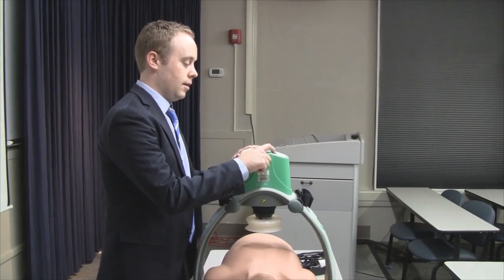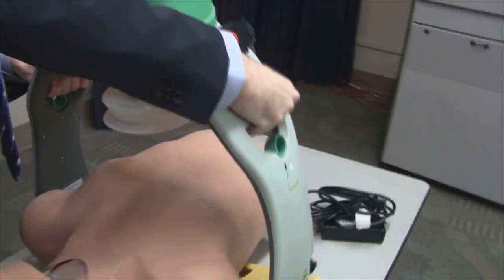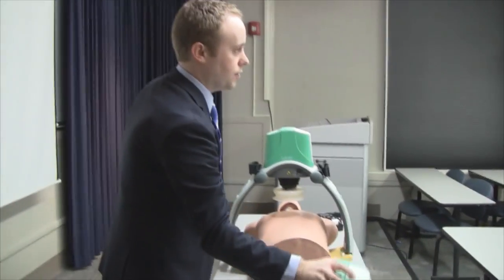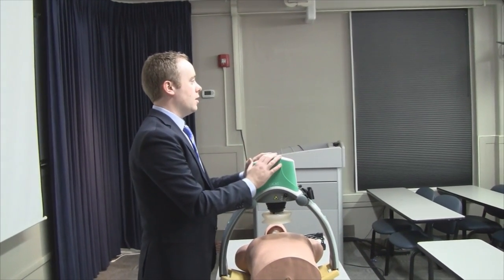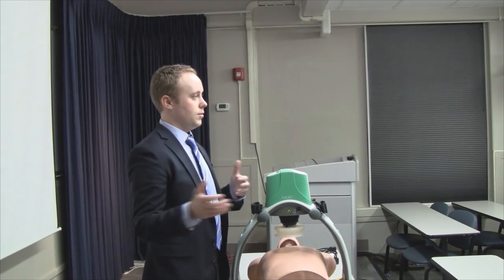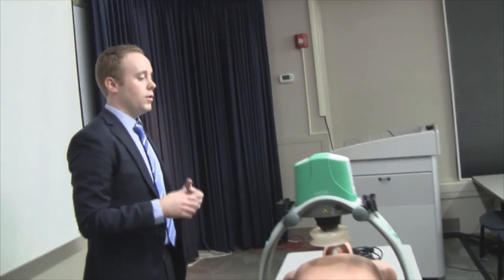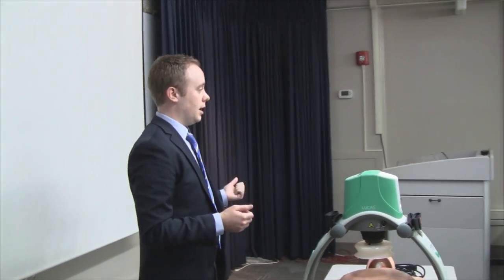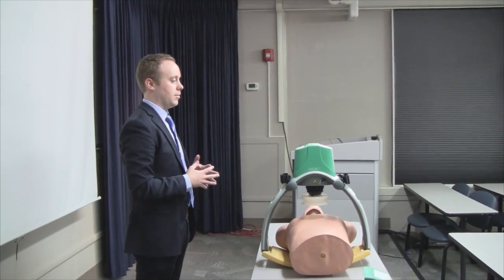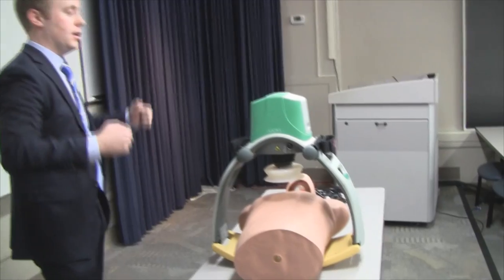To turn it off, it's just the power button. To disconnect, there are two rings — pull up on these and it'll release, then snap back into place. There are two batteries included: each fully charged battery gives 45 minutes of operation, so theoretically up to 90 minutes total. In the hospital setting you're usually within reach of an outlet, so there's an AC adapter that gives quite a bit of distance. Once you're situated, just plug it in and it'll run indefinitely. There are also wrist straps to keep the patient's arms up out of the way.